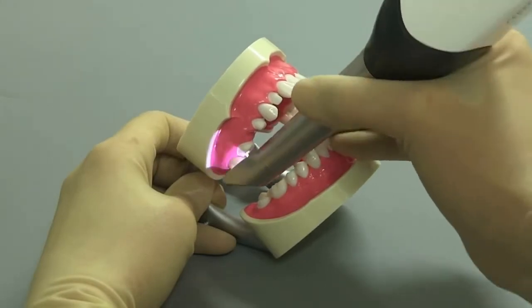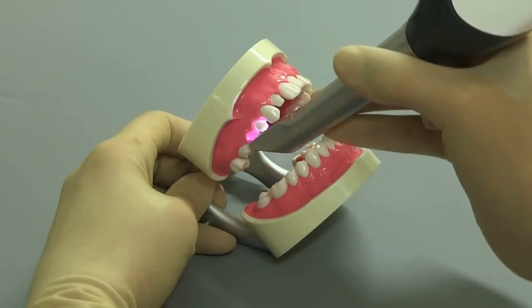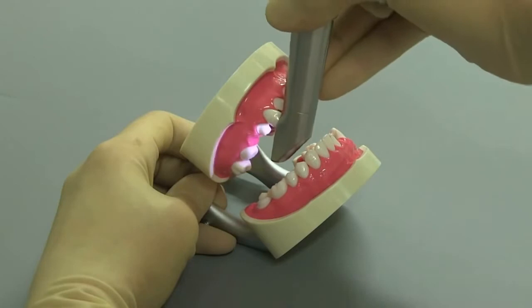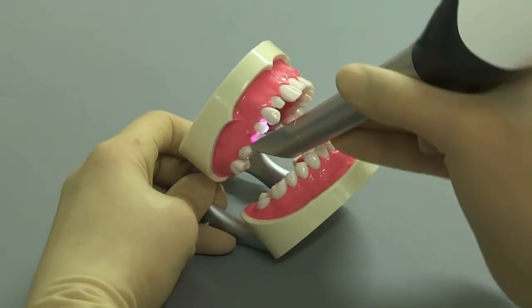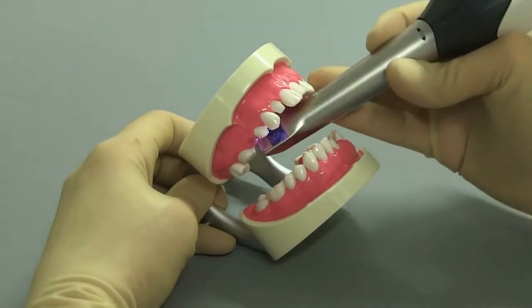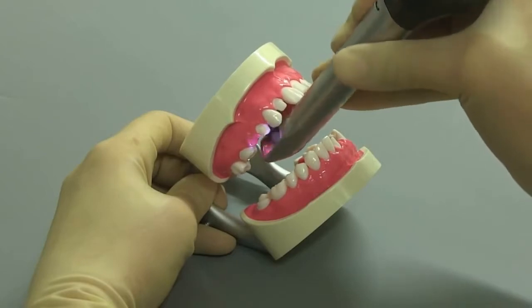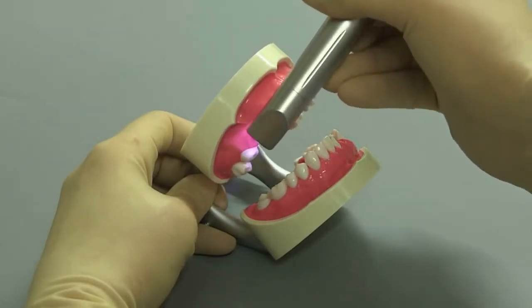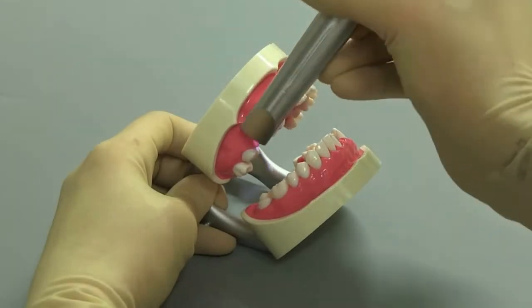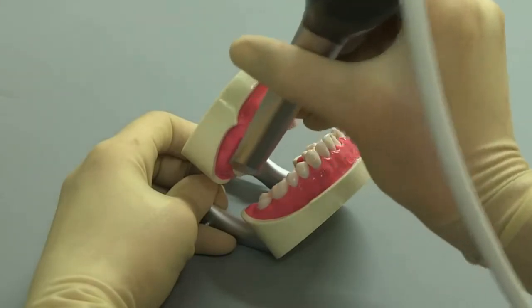Here you see the simulation of scanning a prepared tooth. In this case, acquire the approximal surfaces in the distal and mesial direction by using a wave motion in the occlusal, palatinal and buccal direction over the prepared tooth. Make sure that you acquire data from both sides of the preparation margin. Tilt the surface in the distal and mesial direction to gain a better view of the approximal contacts.